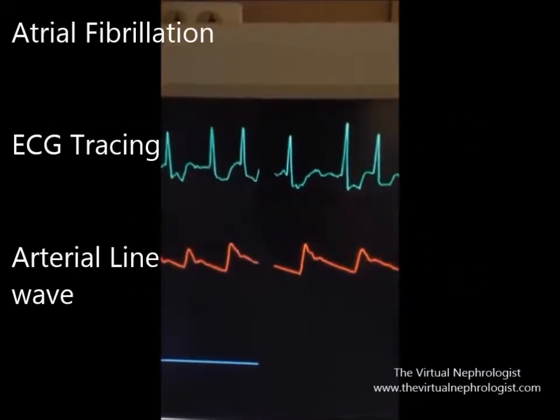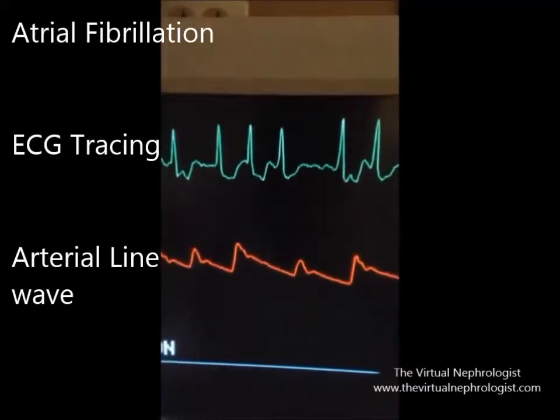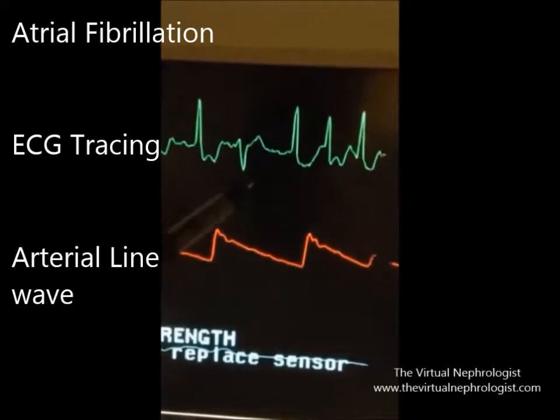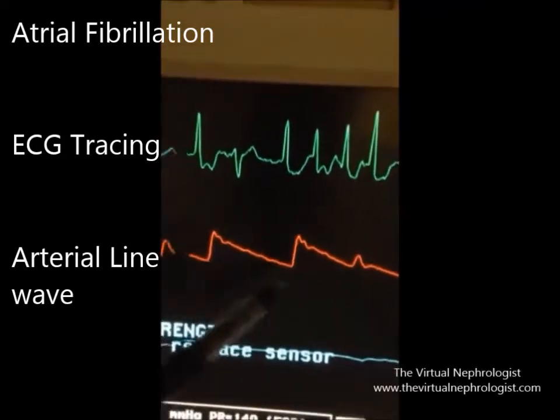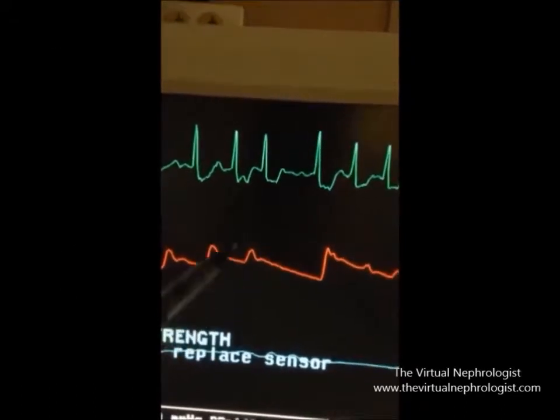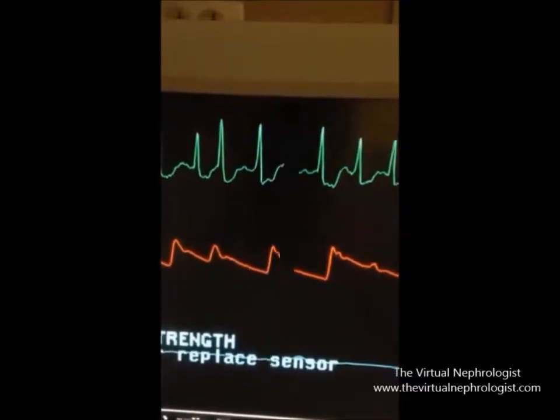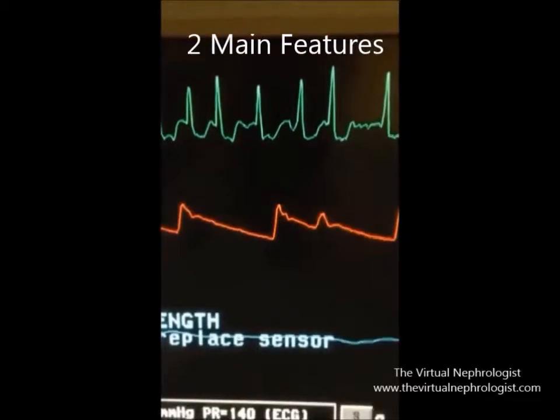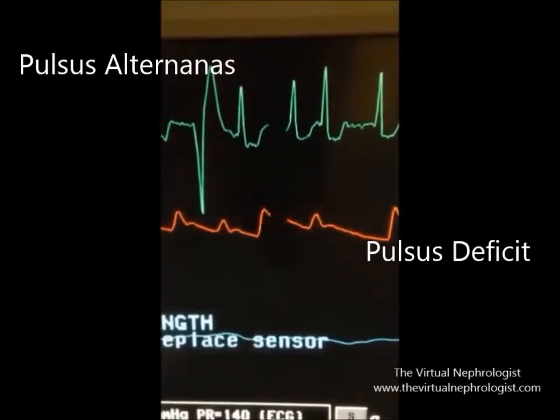This is a classic atrial fibrillation. The top rhythm is the cardiac rhythm and the bottom is the A-line signal. The two main features that are unique to atrial fibrillation are pulsus alternans and pulse deficit.